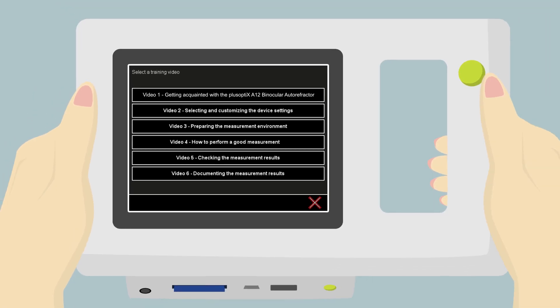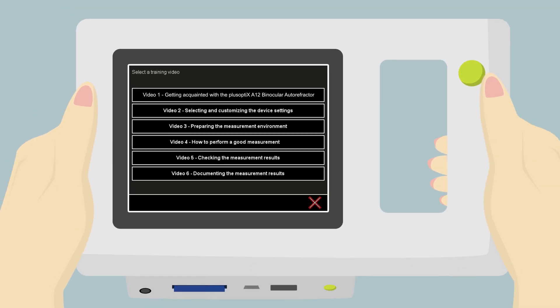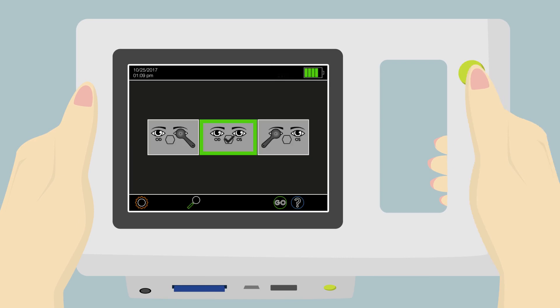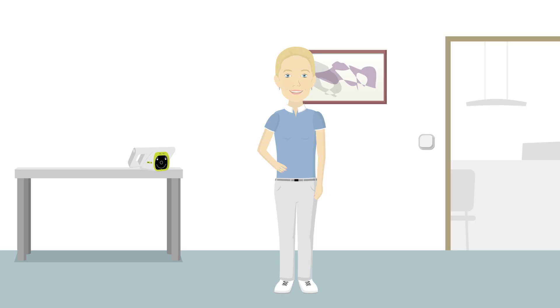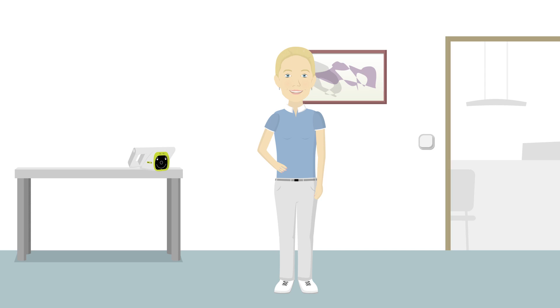Anna can return to the home page by pushing the green shutter button on the handle. The settings on this PlusOptics device are now set for optimal performance.